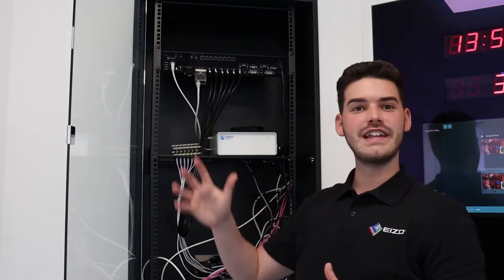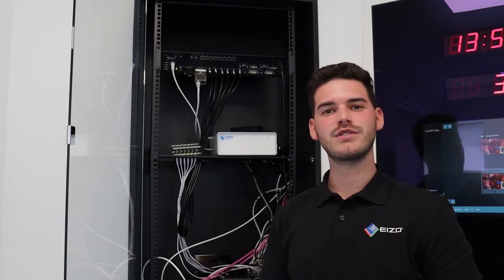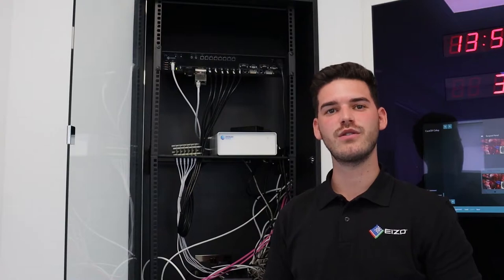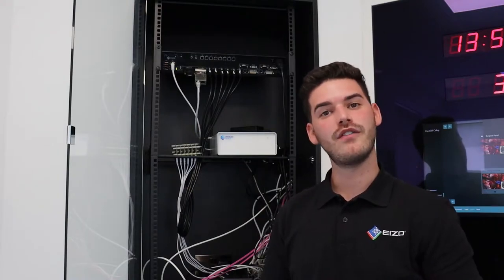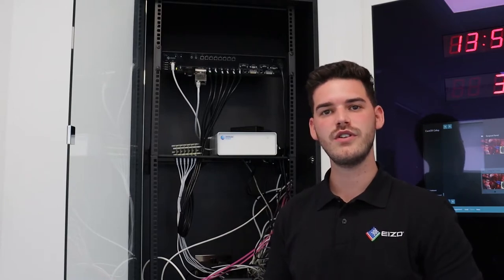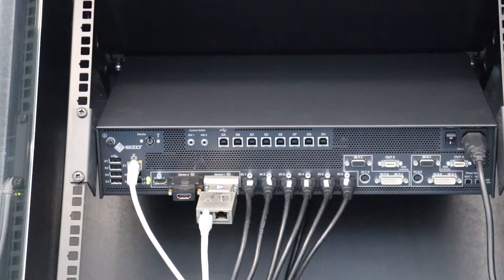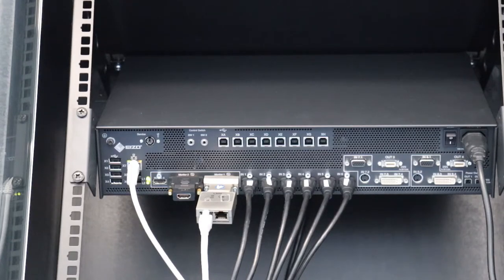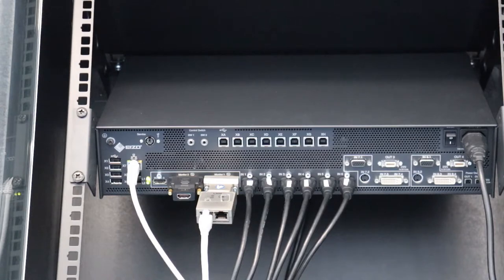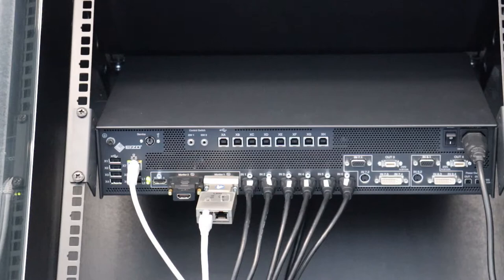Here we have the Large Monitor Manager, or LMM for short. The LMM bundles up different analogue or digital signal sources and enables you to view and control them from one location. A perfect use case for the LMM is a control desk or cockpit style solution within the operating room. The model we have here is the LMM804. It's able to collect the separate sources and display them on a large format or multiple monitors with a resolution of up to 1920x1200, including full HD.